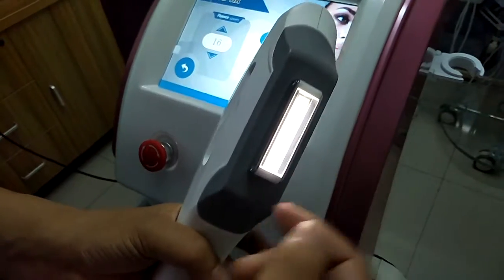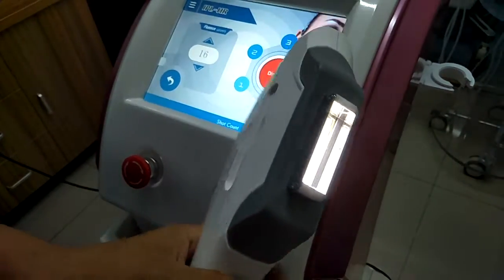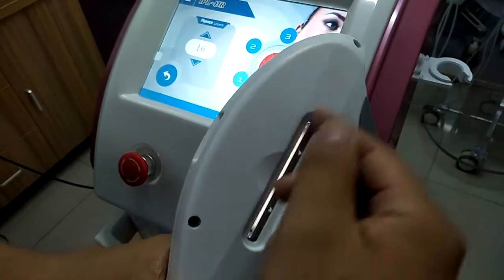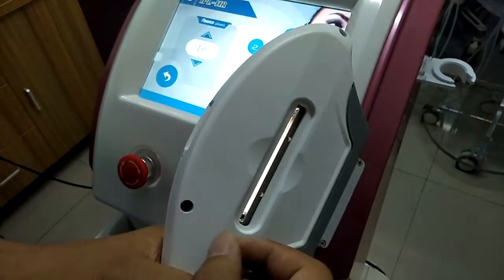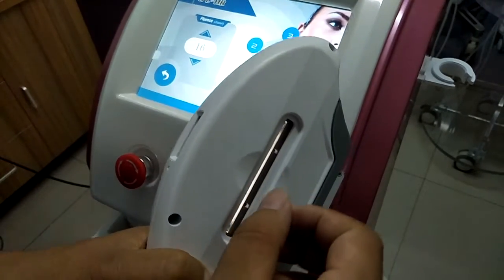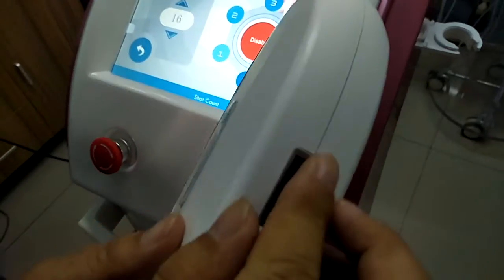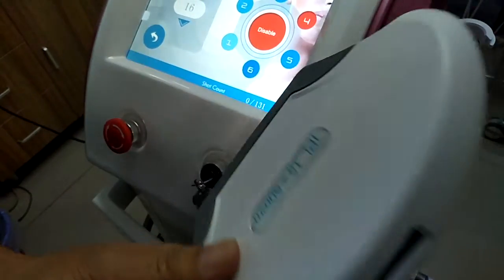This process is the biggest process. Here is the filter part — you can insert different filters for different treatments. And here is the counter window.